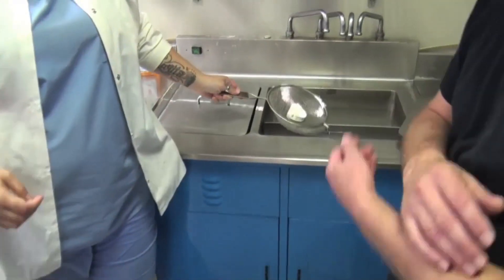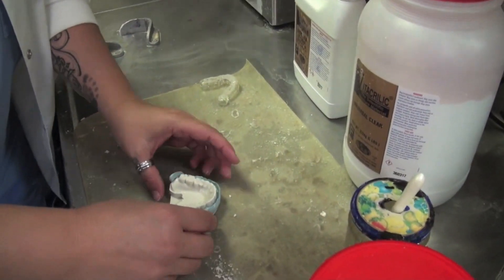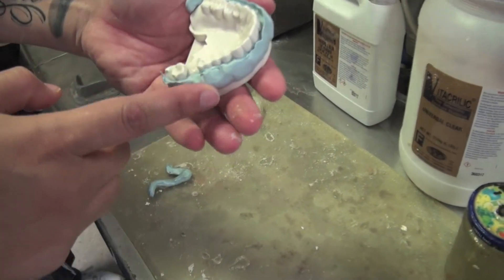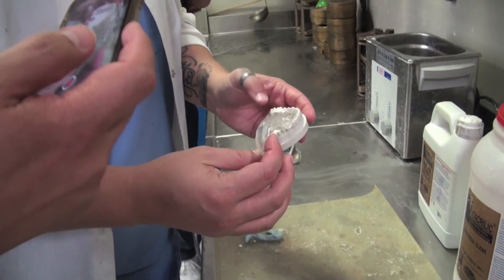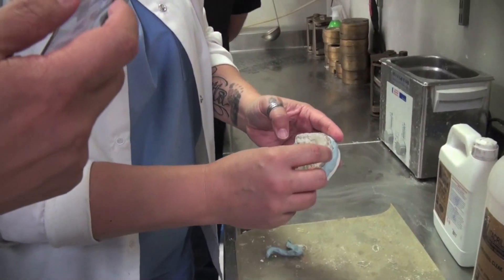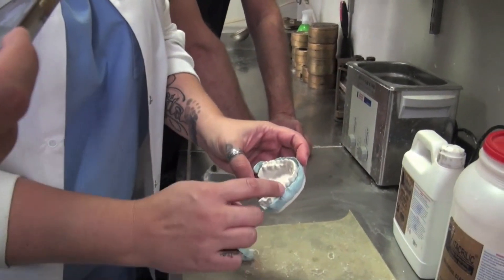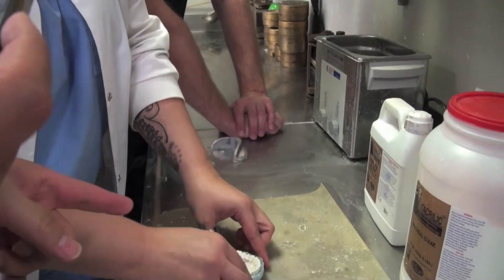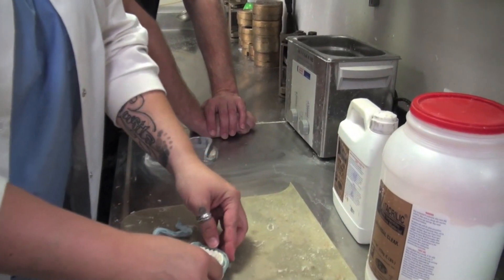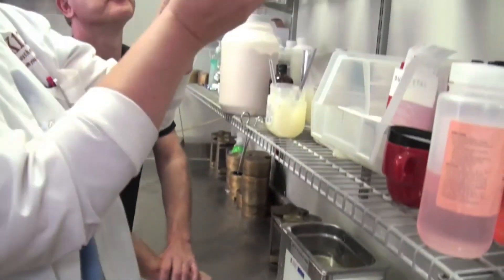Heat the bottle up again, then put on my little putty matrix that I made — see how it's going to hold it into the same position that I need it on the model. I trimmed in the occlusion on my articulated models; this one's not articulated so I made a putty matrix to hold it in the same position I would need, like it was on the articulator, so I can do my soft reline. Put the hot water with this, soak it in to eliminate the bubble, then separator. Now I'm putting my putty matrix back together.